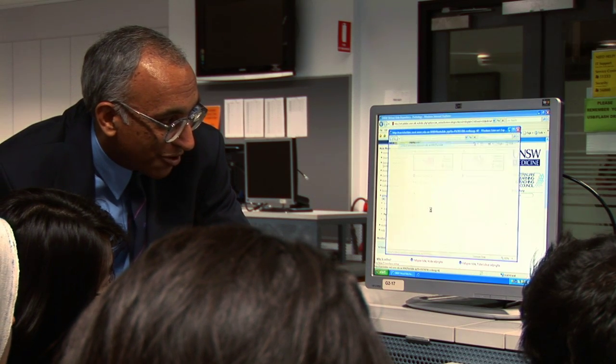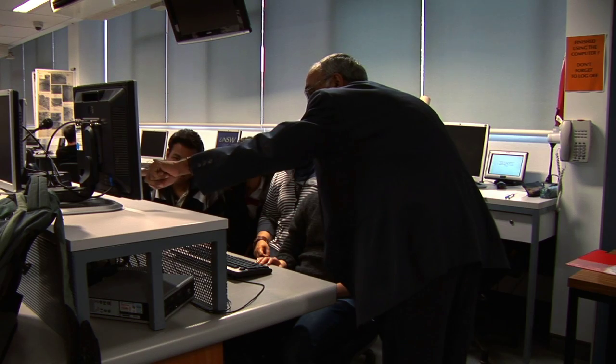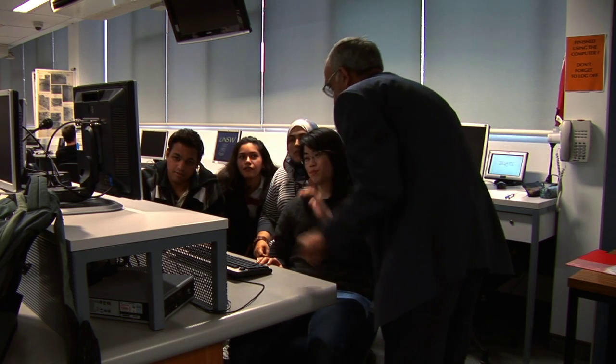At the University of New South Wales, we have, for the past five years, been teaching medicine and science students about histology and histopathology using virtual microscopy. With funding from the Australian Learning and Teaching Council, we've developed a repository of virtual slides for anatomy, pathology and, for the first time, for botany and zoology.